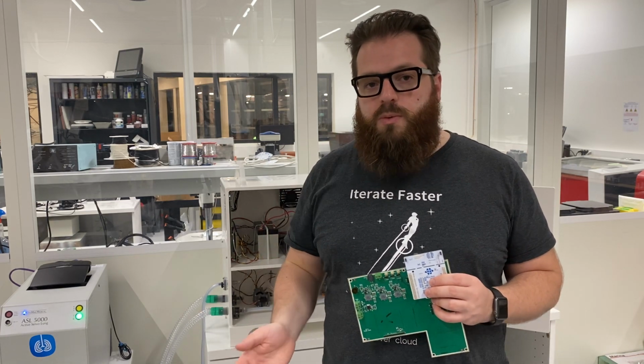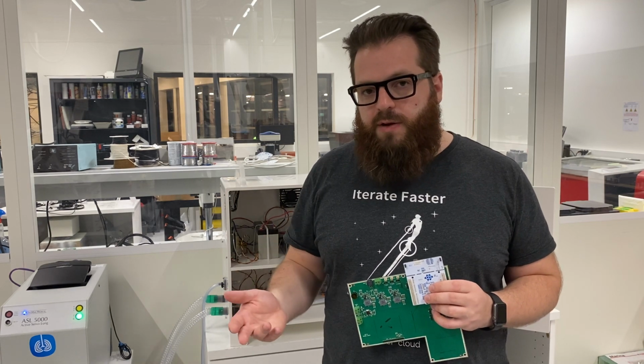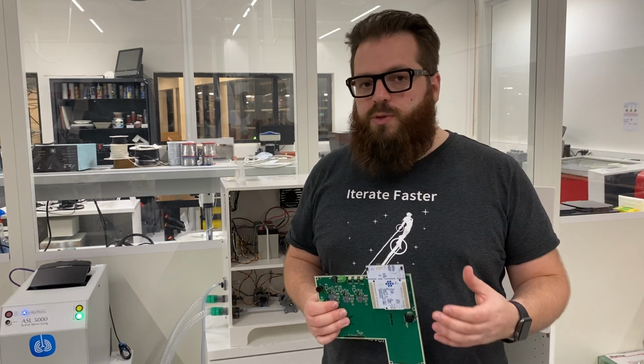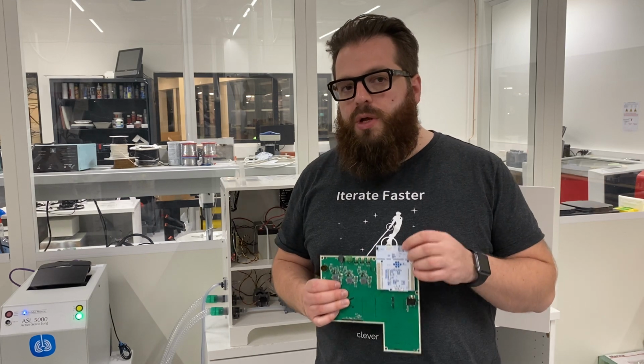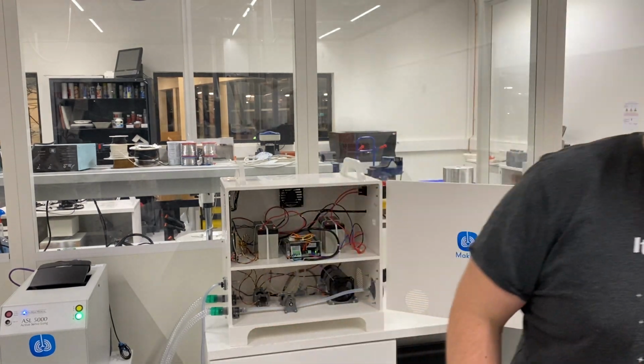The beginning of the project was on Arduino and stuff like this, but the stability of this kind of platform is not good enough. So that's why we went to a real industrial grade system like this one on the electronic part, and all the code is open source.